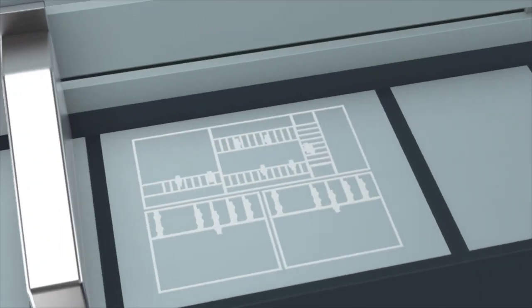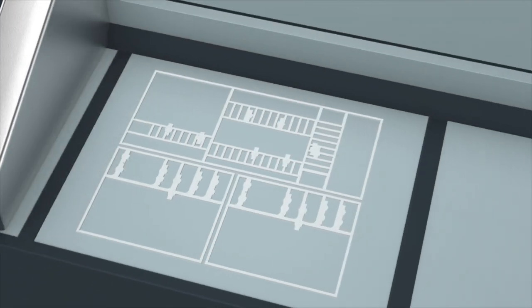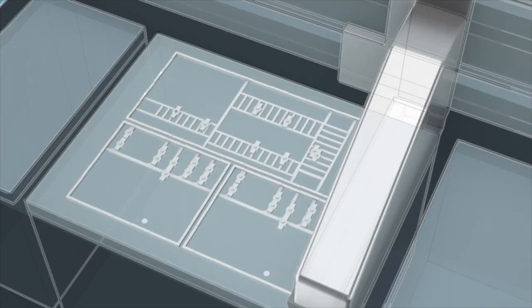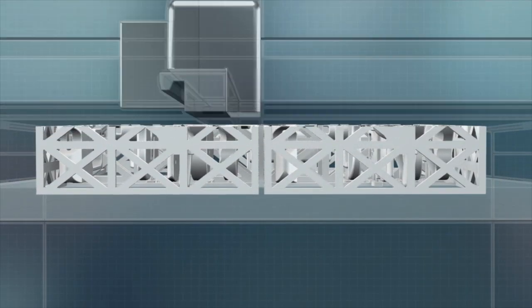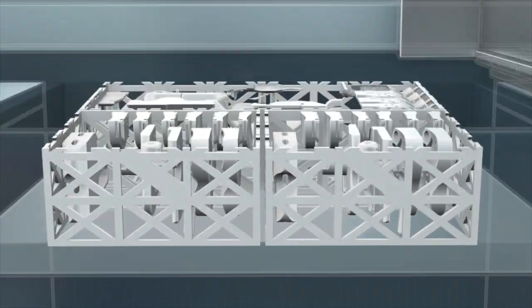This graphic shows how the instruments are printed on the 3D printer. It lays down one layer of molecules of plastic until it's built up into the entire system that can then be separated out.